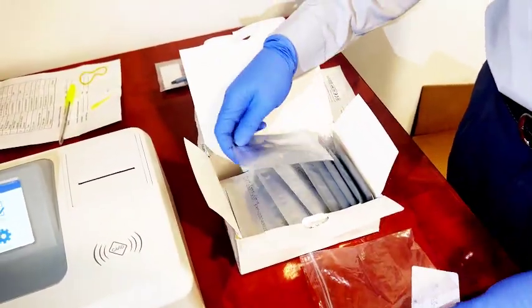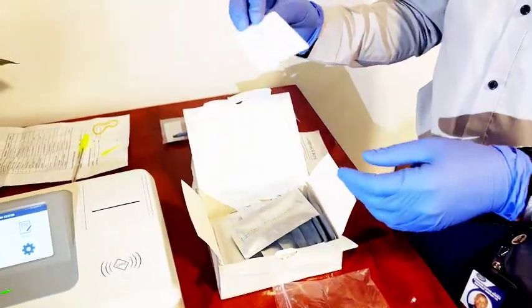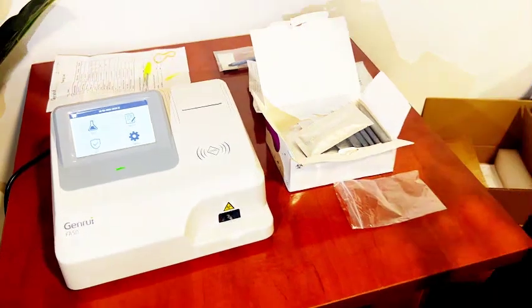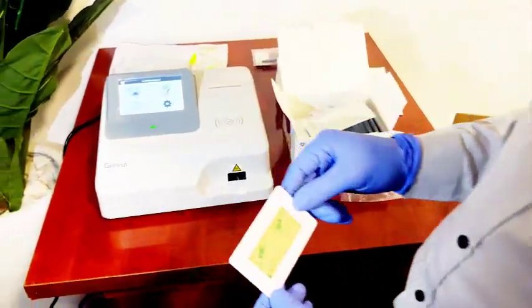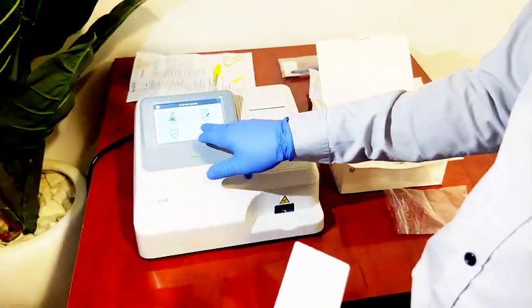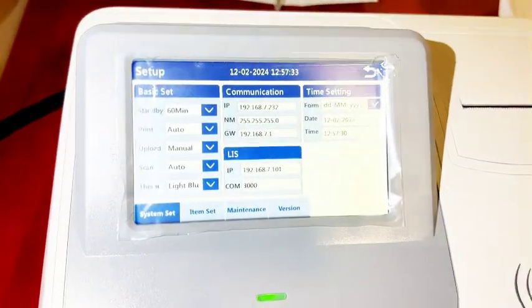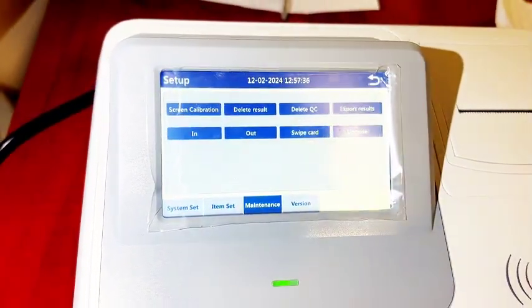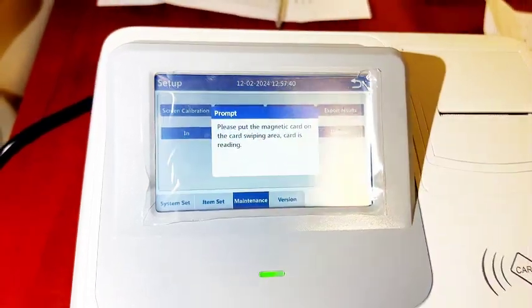The next stage is how we program the reagent into the machine. These are the procedures. Firstly, you click on Setup. Click on Setup, then click on Maintenance, then Swap Card.